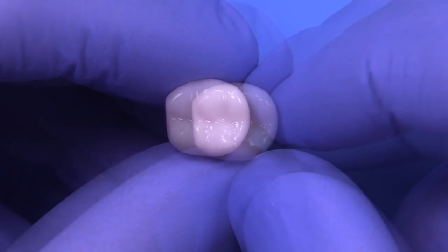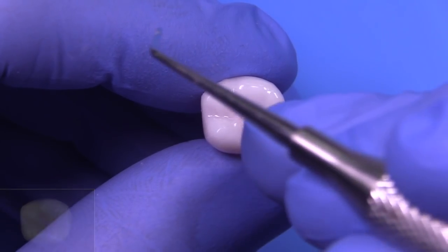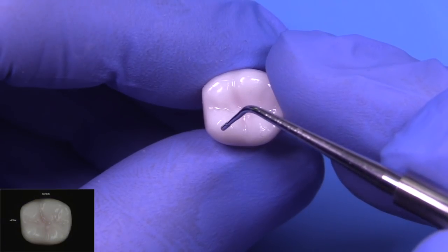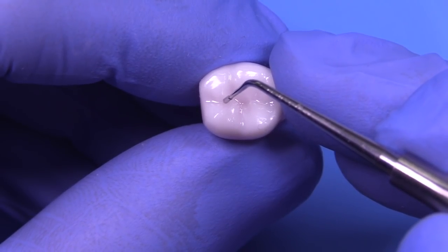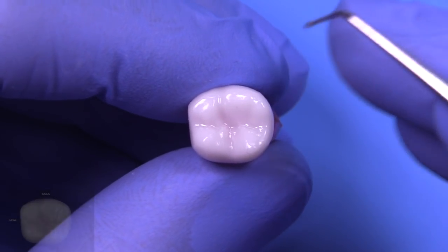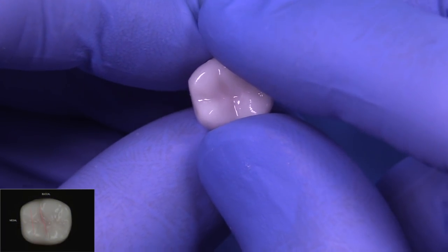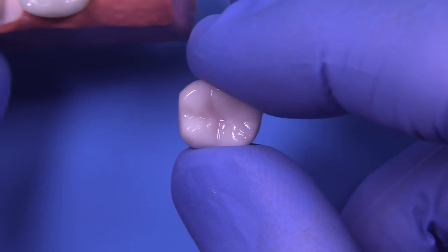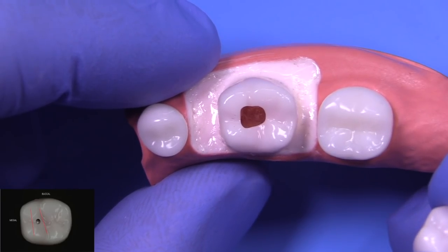So we're reminded about the access here. The boundary on the mesial is the line drawn from the mesial buccal to the mesial lingual cusp tip. The distal boundary would be the buccal lingual grooves. You're going to start your access between those two boundaries right in the middle of the tooth, utilizing usually a two round burr, and then moving up to perhaps a four round burr where you unroof the chamber of the pulp. Then you start your preparation to locate the canals.